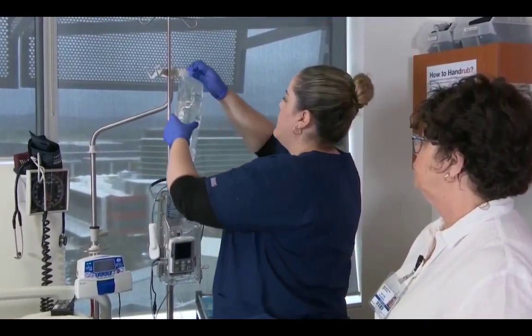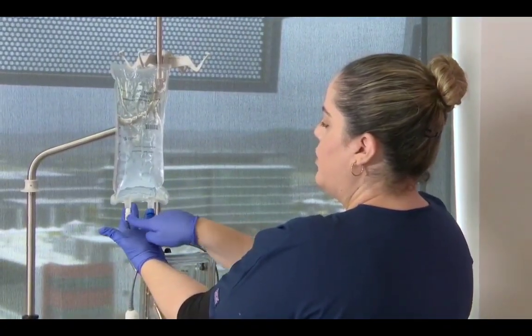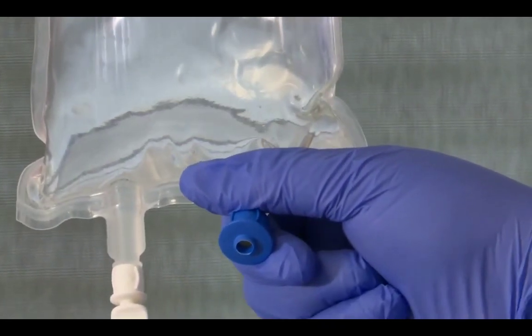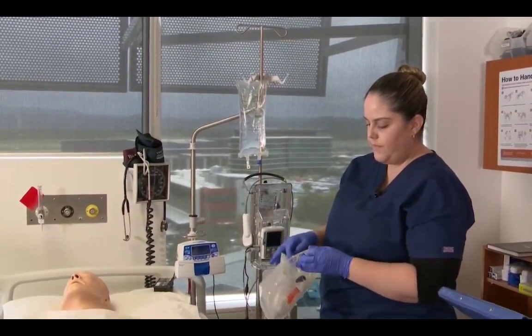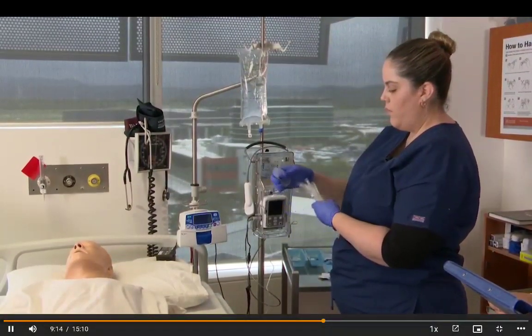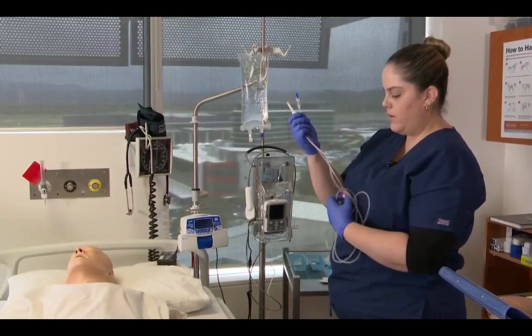So I've got my sodium chloride, hanging it on my IV line. Okay, so again, it has the 2 ports, the in and the out, but we are only spiking into the big bag. So that's our blue cap off. For our IV line, we're just going to open the line, remove it from the bag, keep control of both ends, and close the roller clamp.